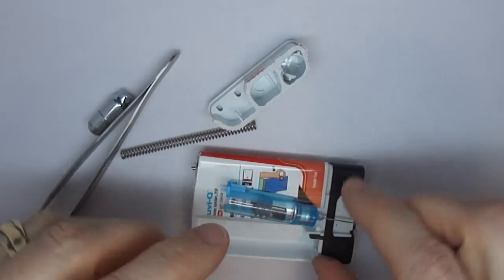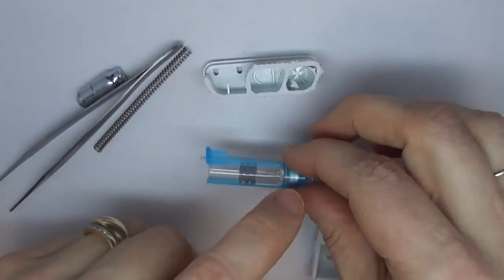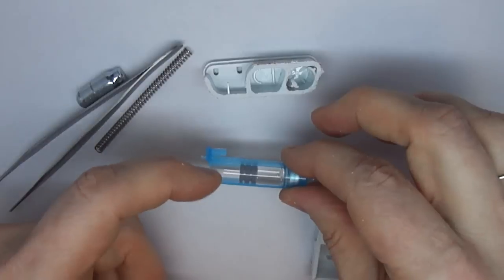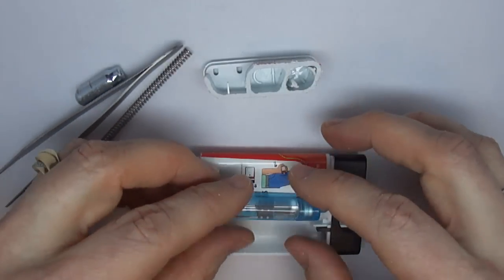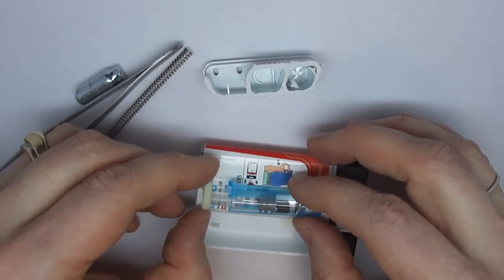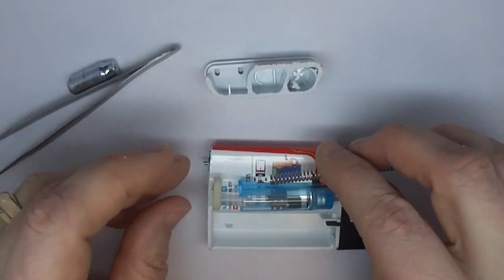So in a resting device, you can see there's some residual epinephrine in here. But in a resting device, this plunger would be higher up like this. And it will be sitting like this. And the spring is here like this.